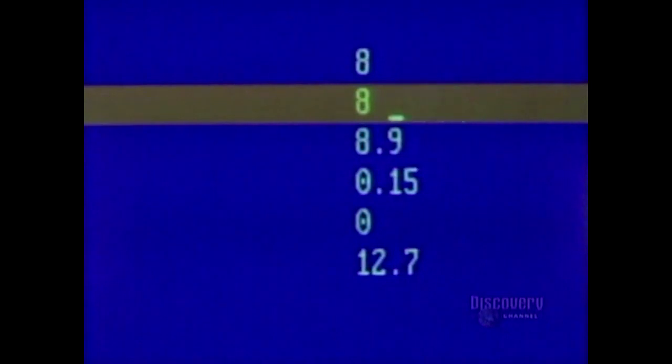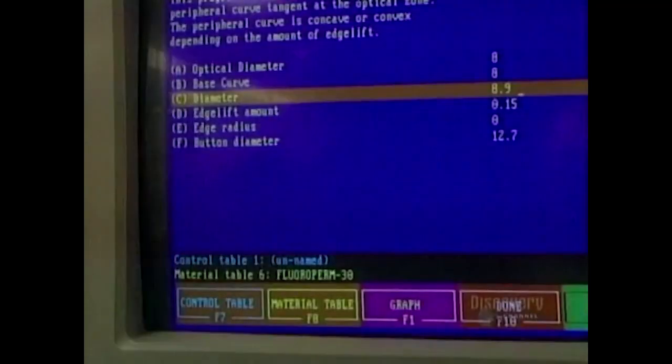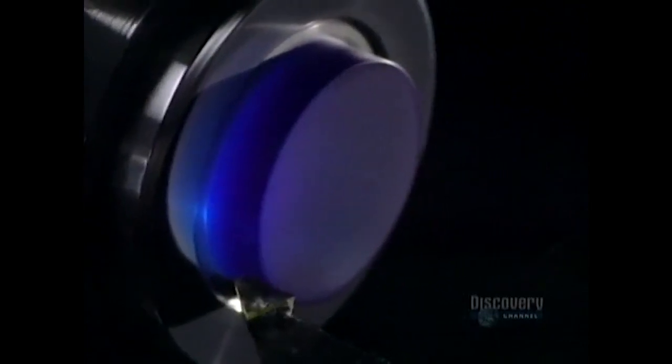The process begins with data processing control of the shaping. Data is supplied by computer, which controls a digital lathe.